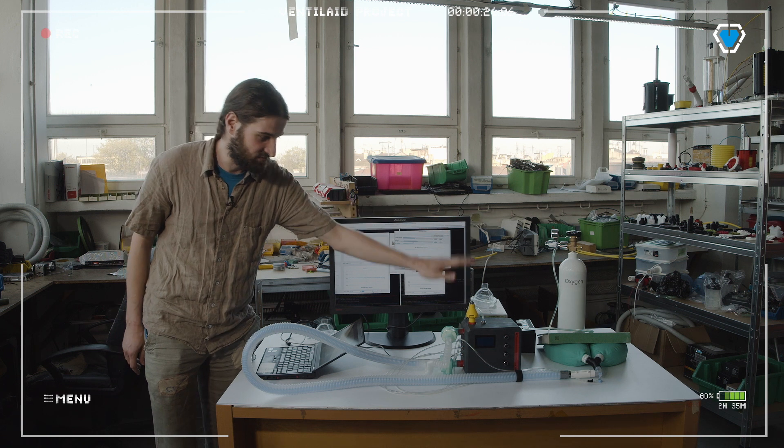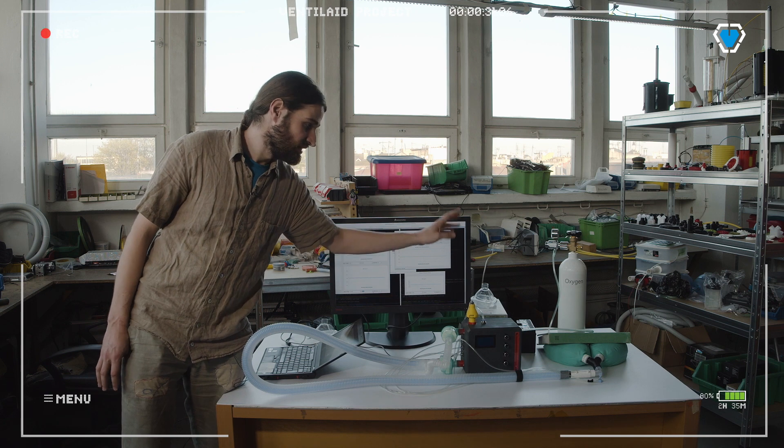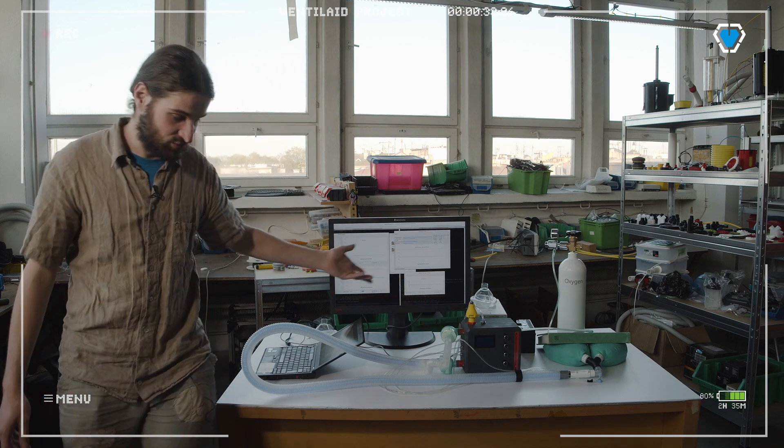As you see, we have the device. The device requires some electrical power. There are various ways how you can deal with that.